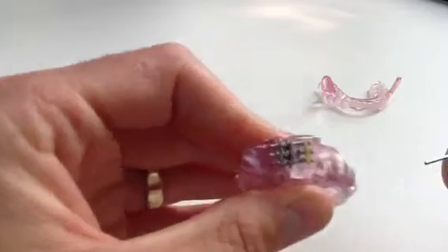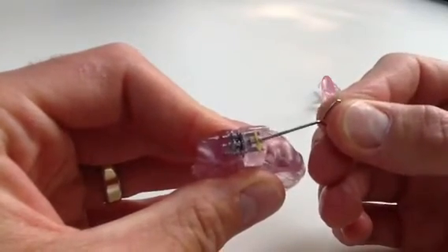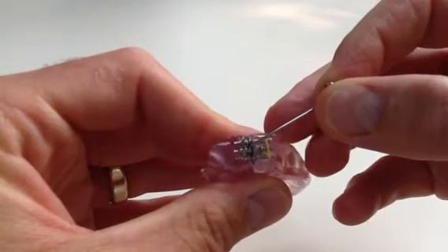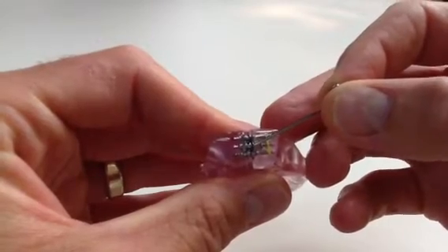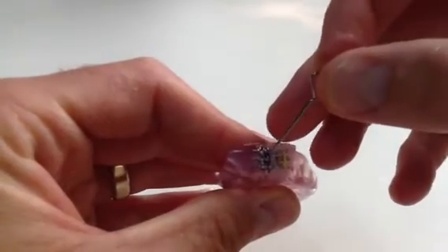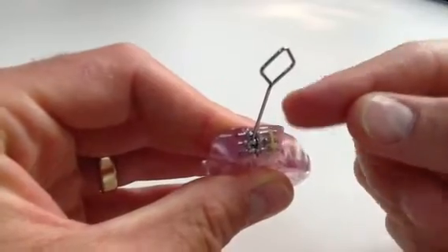The adjustment needs to be done on two sides. There is an arrow which shows which way adjustment needs to be done to move the mandible forward. You can see there are three small little holes in here — two of them are visible now. The key is this small piece here. It goes in the upper hole at the top of the arrow.